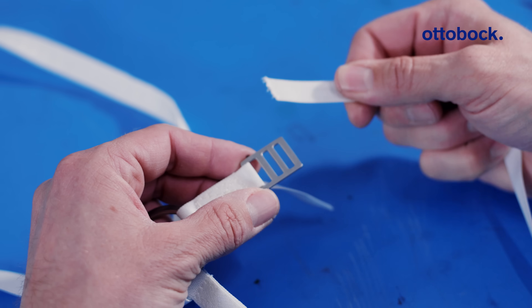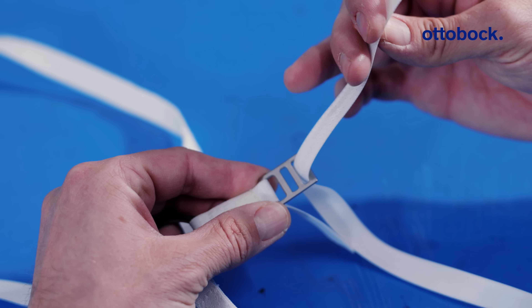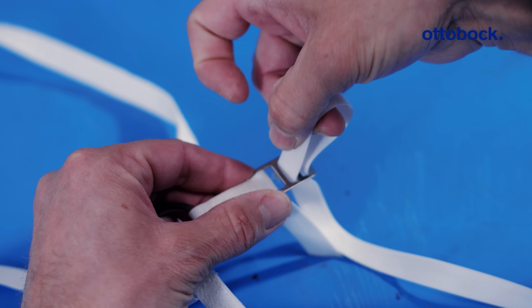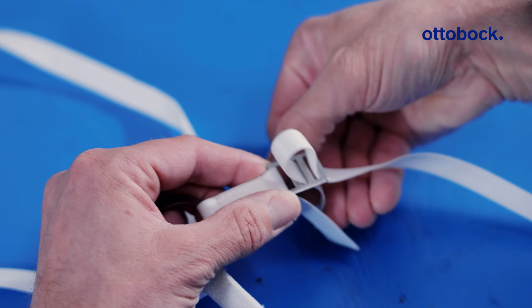To begin with, you take your webbing and you're going to put it through the last final hole in the buckle from underneath. Then you're going to lace it through the middle one going down, and then back up through the final hole.